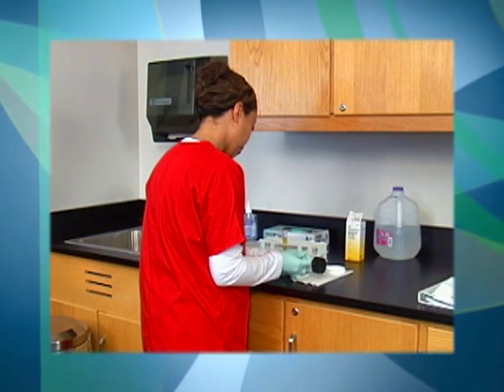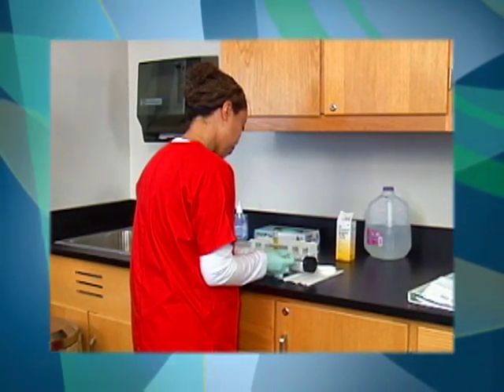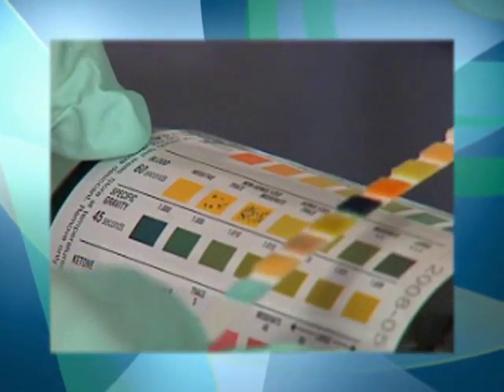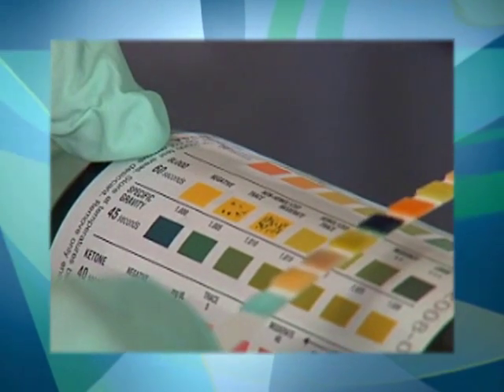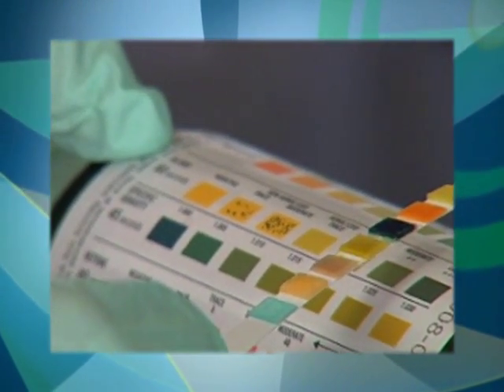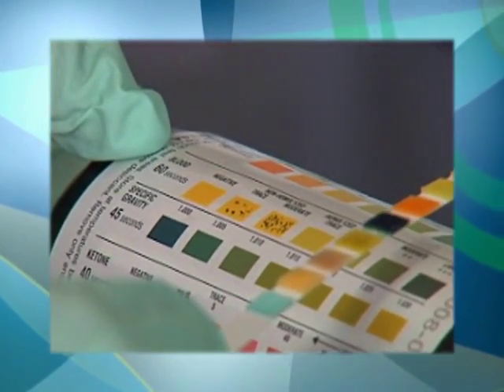The chemical testing of urine is an indirect means of detecting abnormal amounts of chemicals in the body, which may indicate a pathological condition. Chemical testing of urine can also be used to detect the presence of a substance that does not normally appear in the urine, except when a disease is present, such as blood.